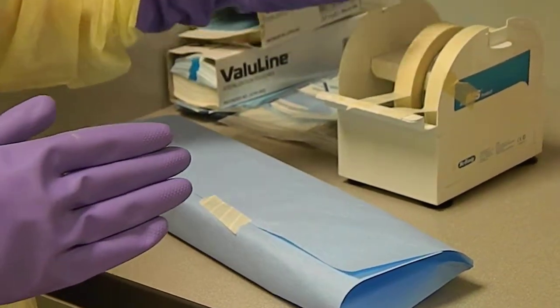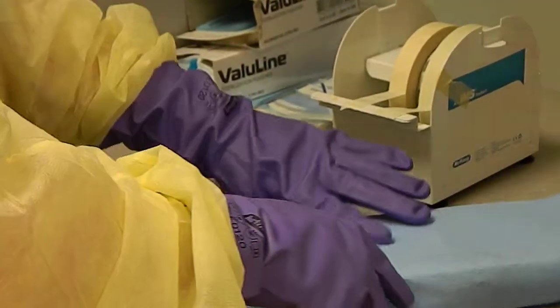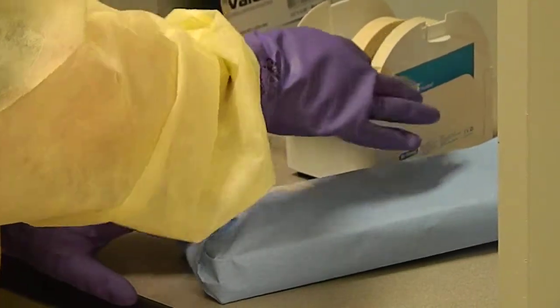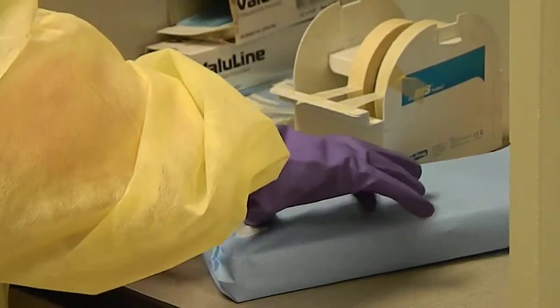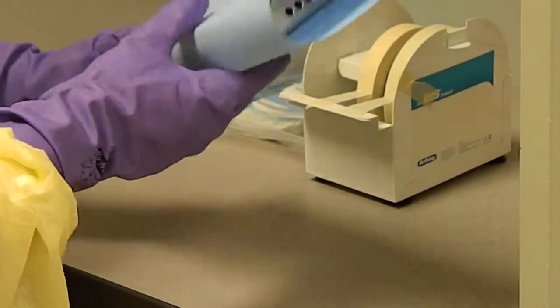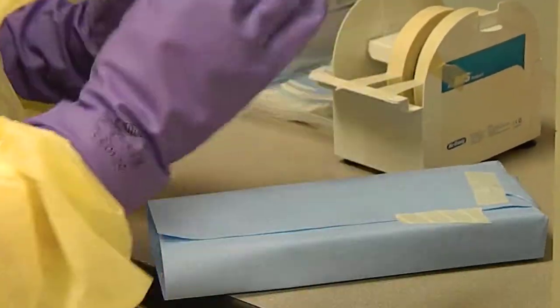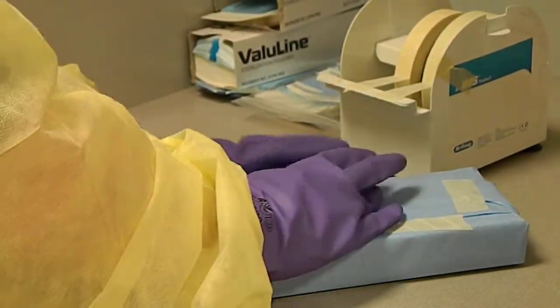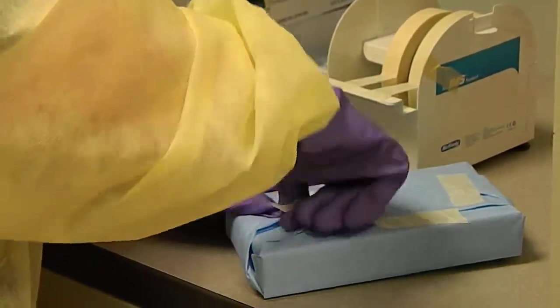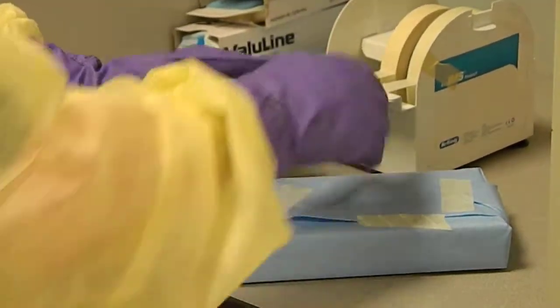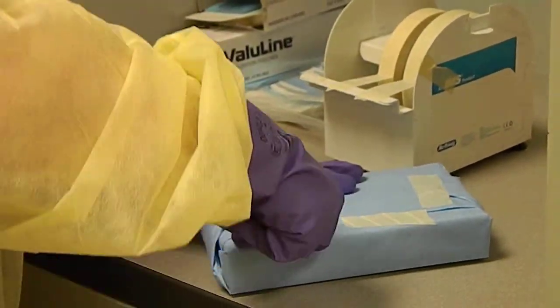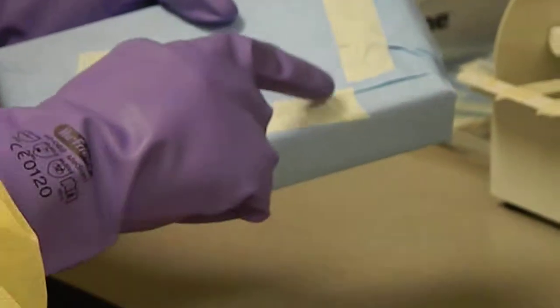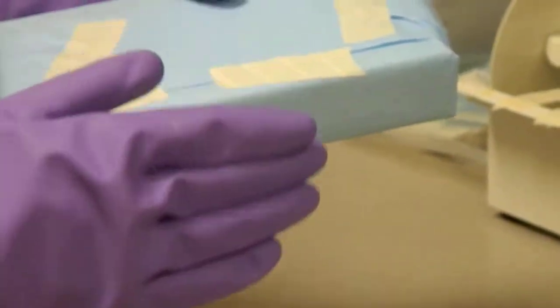And the reason is that this is much more expensive than regular masking tape. You want to make sure there's no gaps or that nothing with the cassette is showing as we're doing this, just because it has to be fully sterile and fully wrapped. And this is open a little bit more. I'm just going to put another little piece of tape. There we go. Now when I heat sterilize this, you will see these stripes on the masking tape and they turn a dark color. And that will show me that this has reached the proper temperature.